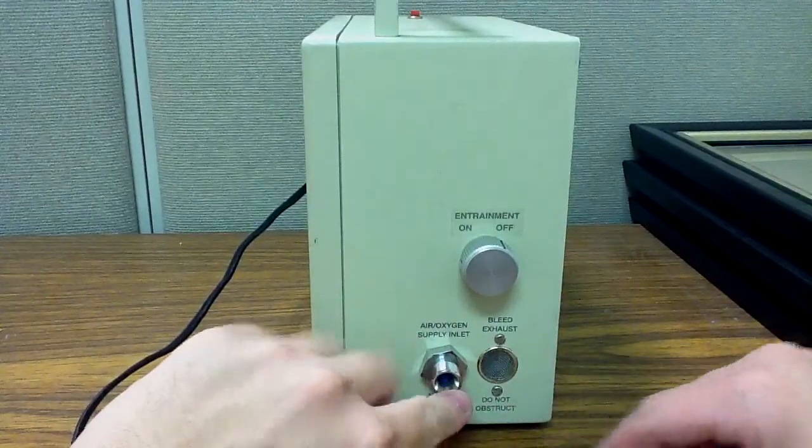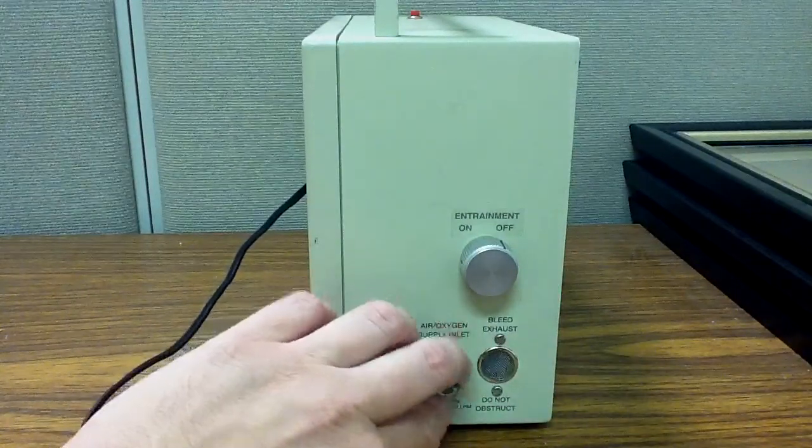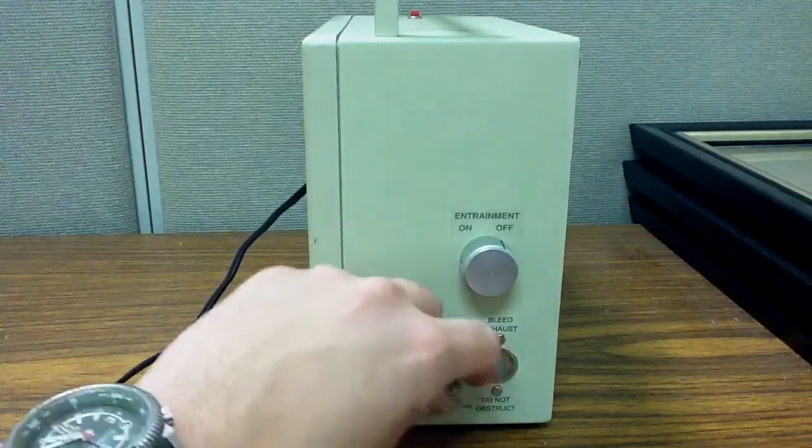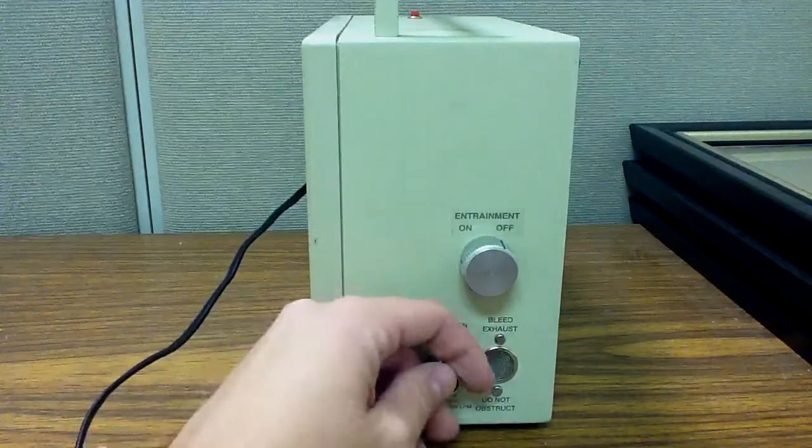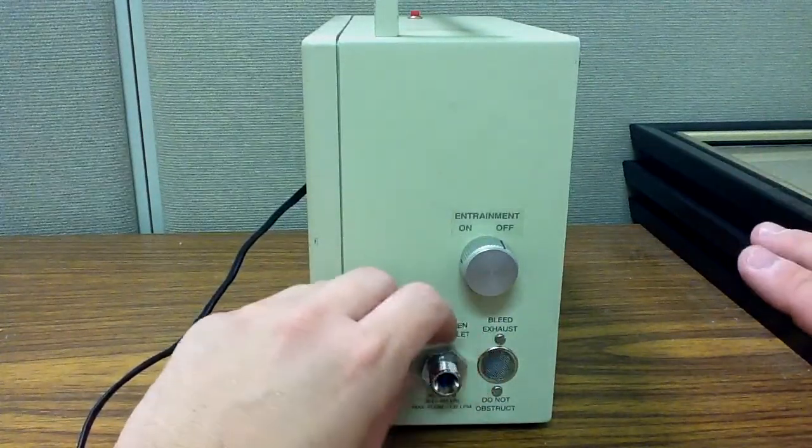This is my high-pressure inlet. This ventilator inlet, so my high-pressure hose will connect to this, and then it'll connect to the tank or the oxygen source.